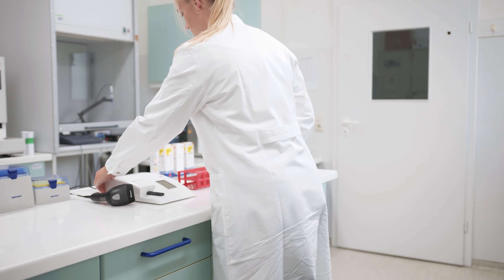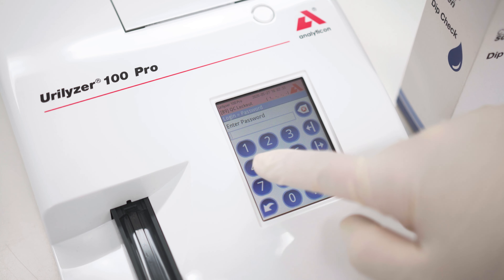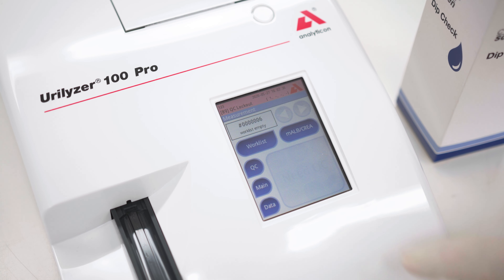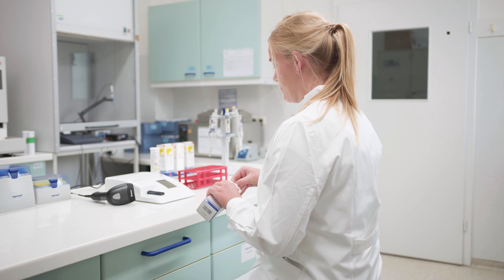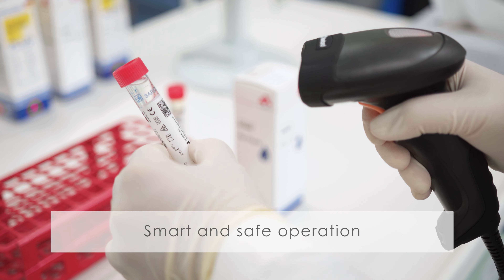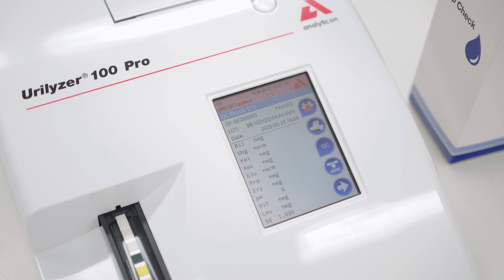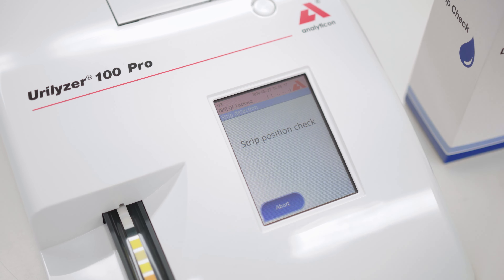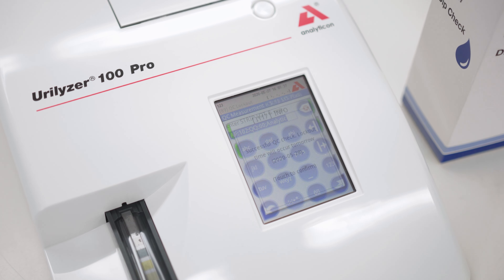Daily operation is easily accessible by a quick start-up routine. The intuitive user interface offers configurable settings, such as for operator and quality control management, to fulfill users' needs. The input of target values and patient data via barcode simplifies the workflow and prevents transmission errors.